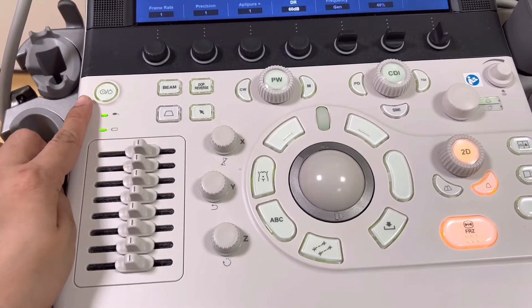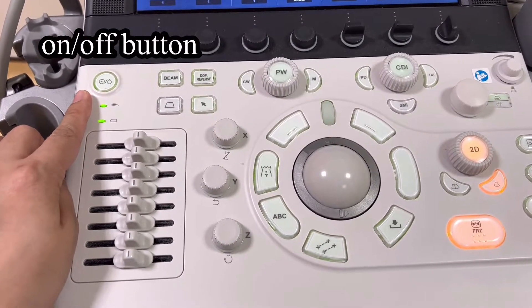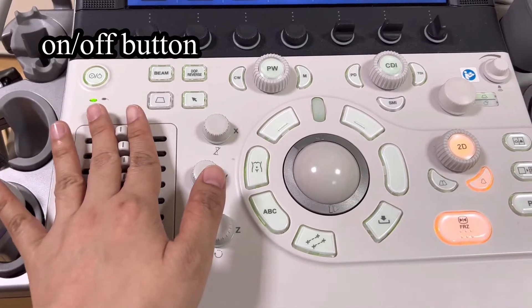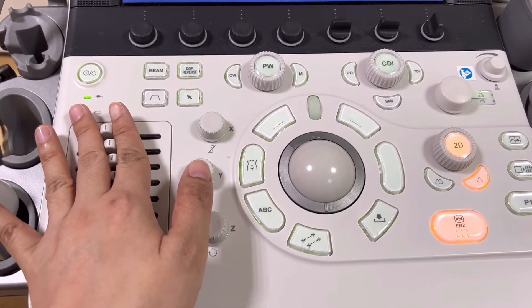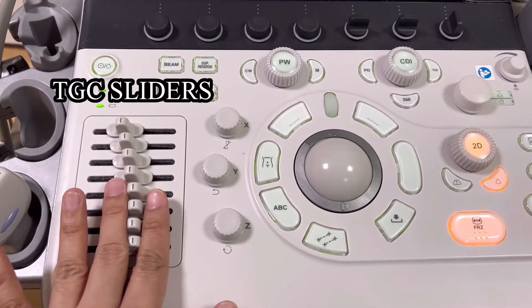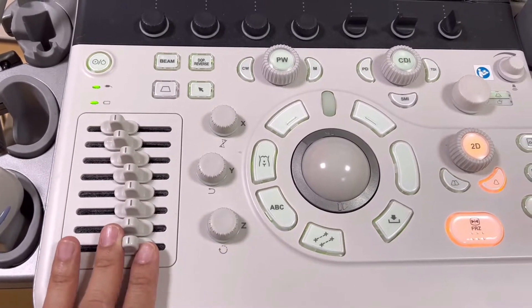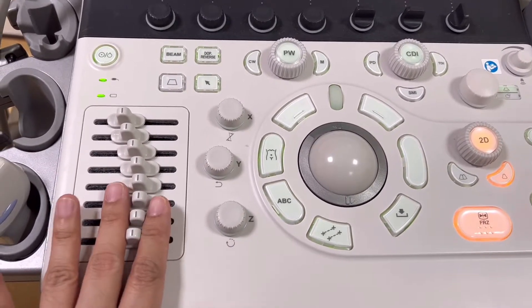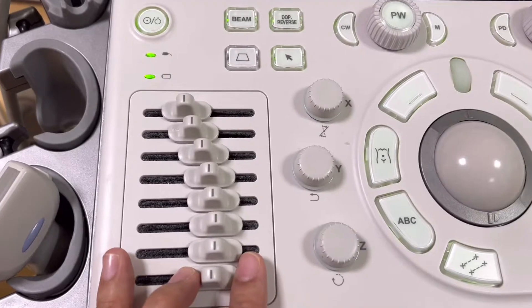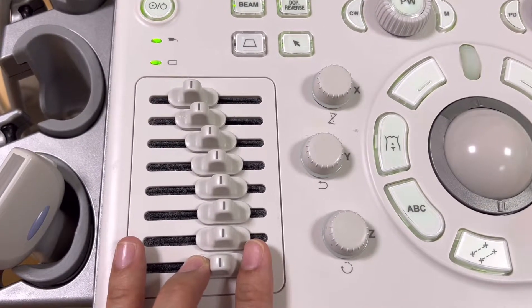Once again, this is the on and off switch. And these are the slider controls for Time Gain Compensation, or TGC. This is utilized to modify the brightness of your image according to the depth and ultrasound beam's penetration.